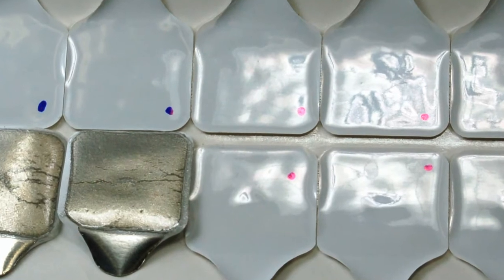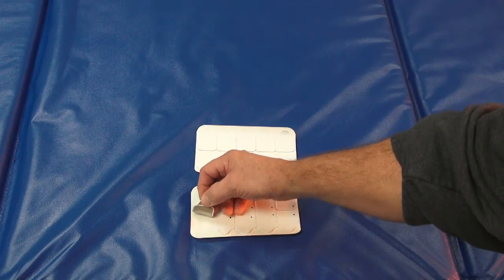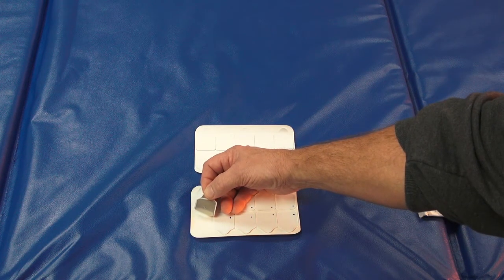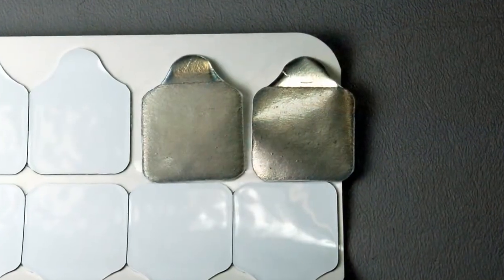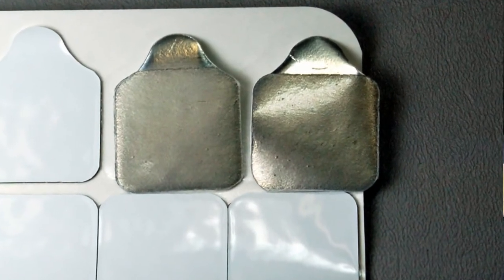With that, you can see anywhere from three-digit reactance numbers to negative numbers. If you compare one to a new electrode, which looks fine, you notice the silver underneath the gel looks fine. There's no white marks, no streaks, or nothing. So that's a telltale sign that the electrodes are starting to go bad.